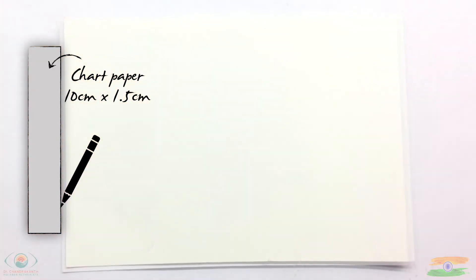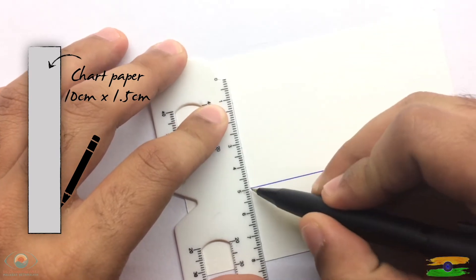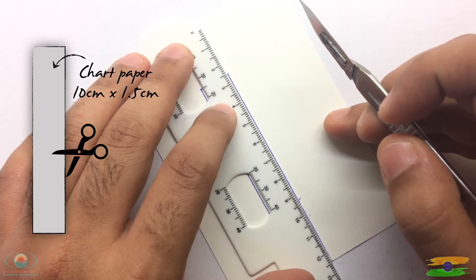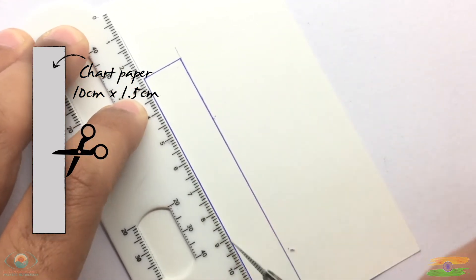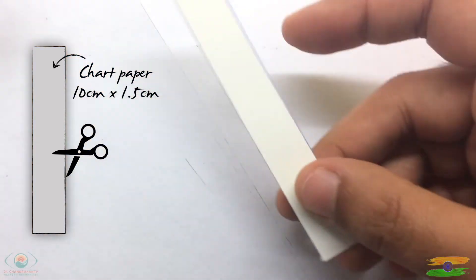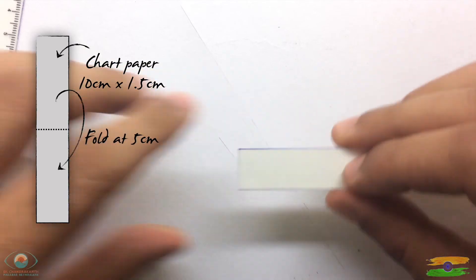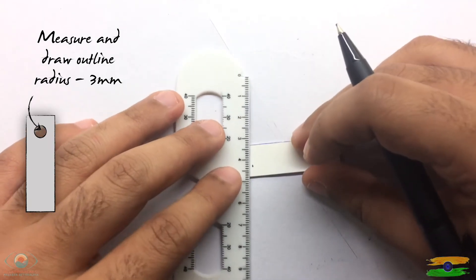To make the ASPE device, take chart paper and mark a length of 10 cm and a breadth of 1.5 cm. Once marked, cut it with a scalpel, an 11 blade, or scissors. Remove the cut-out and fold it in half at 5 cm. Now measure and draw an outline of 3 mm radius.